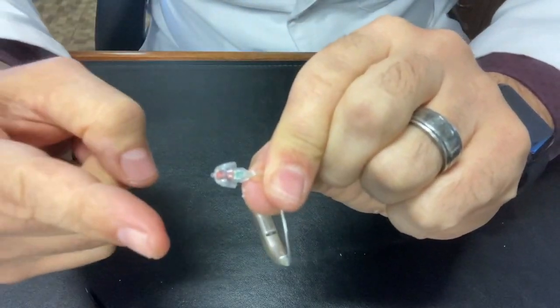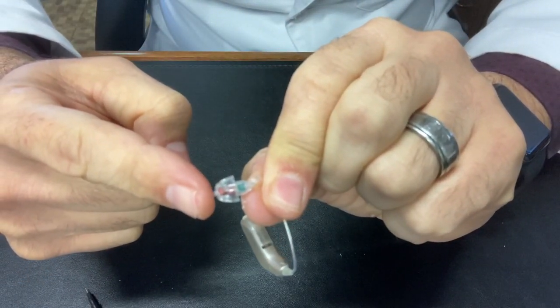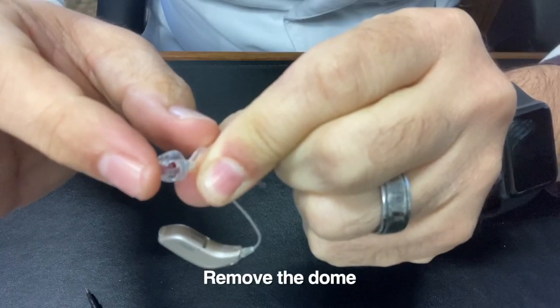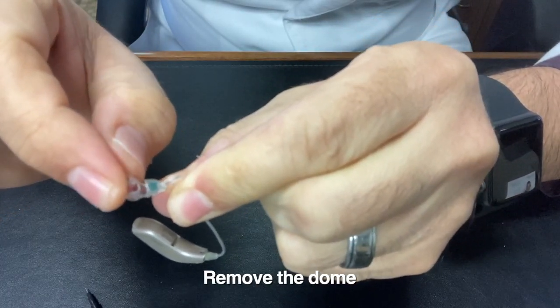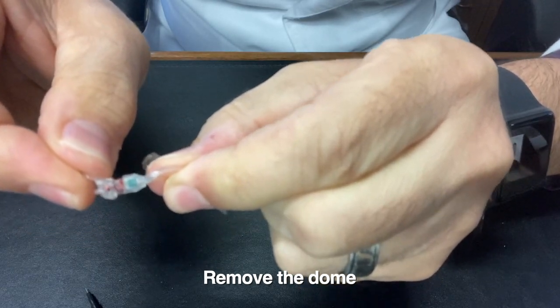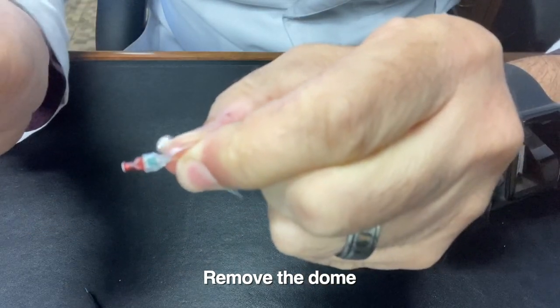So what I'm going to do is put a fingertip right on the end of here. The fingertip goes there, pinch your fingers, and you get a thumb underneath this material, and then you can just pull it right off.